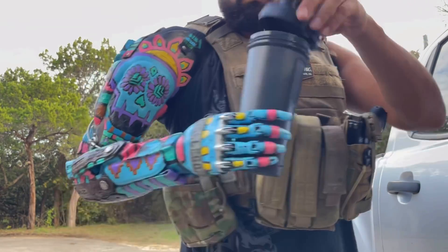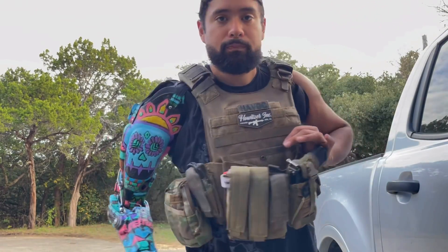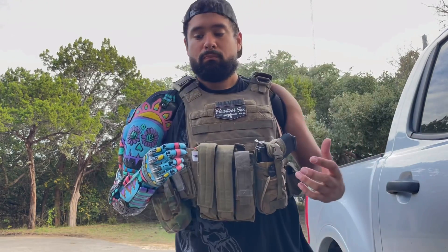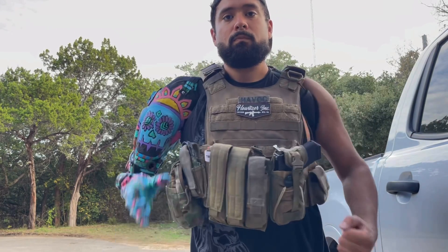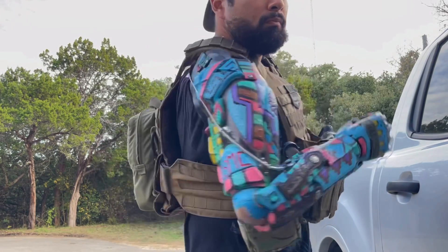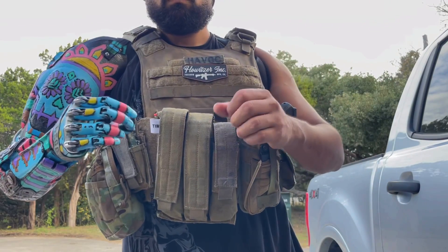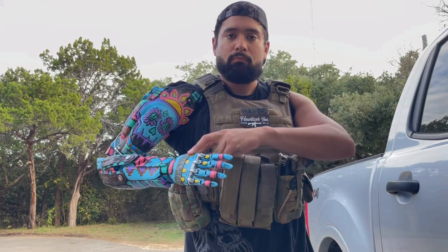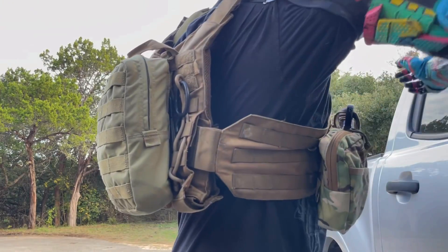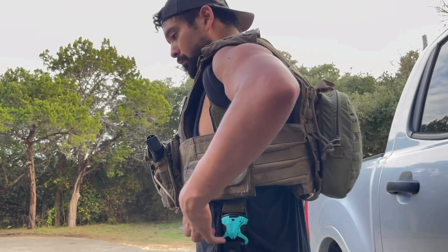Making videos for YouTube is way harder — the horizontal format and editing and all that — but I wanted to start doing YouTube just to explain stuff that's so difficult to cover otherwise. To begin with, this is an Ottobock hybrid arm, and this is the arm everybody asks about in the videos. I just wanted to show that there aren't that many people who have a prosthetic like this and can use it as fluidly as I do, and show how active I am with it.